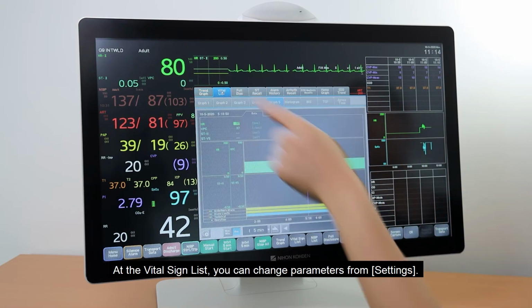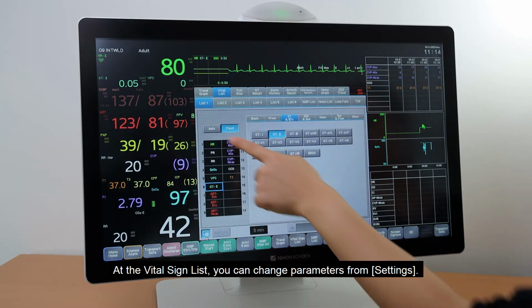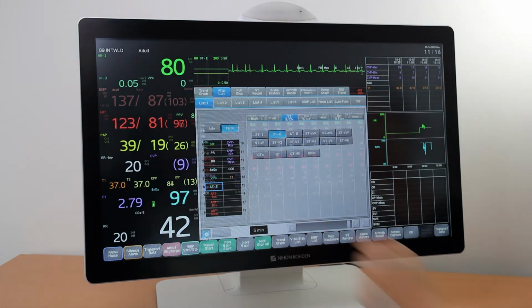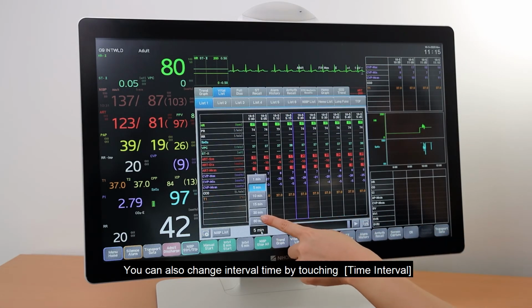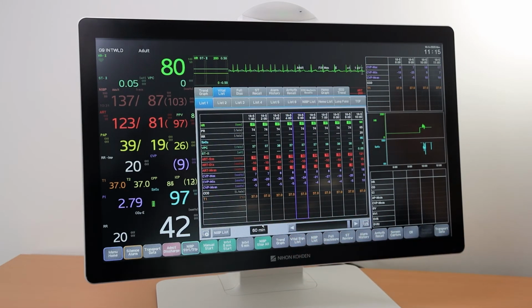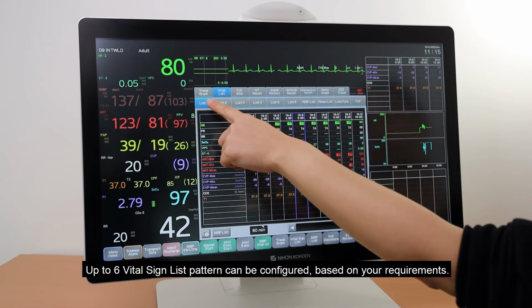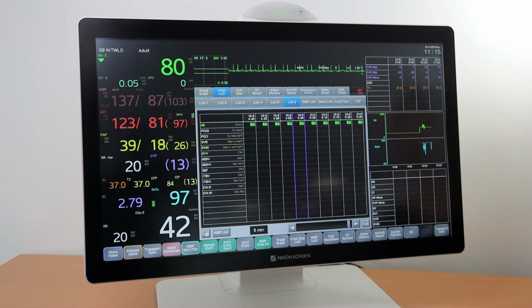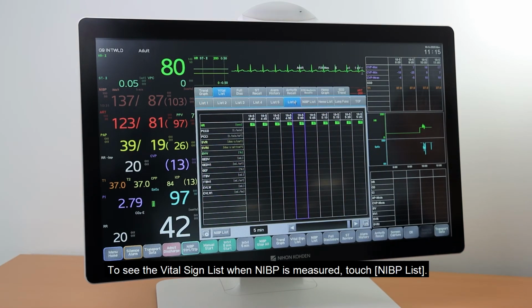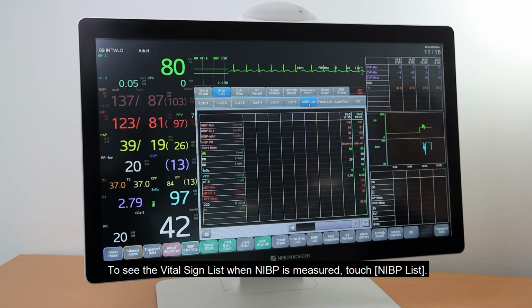At the vital sign list, you can change parameters from settings. You can also change the interval time by touching Time Interval. Up to 6 vital sign list patterns can be configured based on your requirements. To see the vital sign list when NIBP is measured, touch NIBP list.